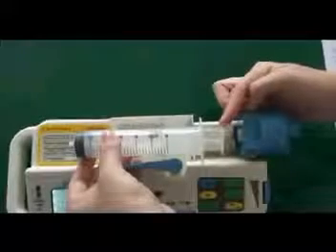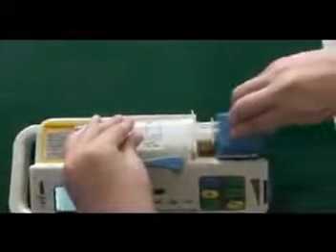Then, fix the syringe into the mounting groove of the syringe pump. Pay attention. This part and this part need to be fixed into the mounting groove here and here. Make sure the piston of the syringe pump touches the piston of the syringe tightly.